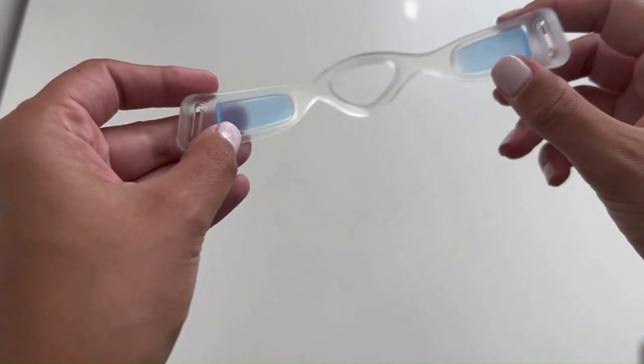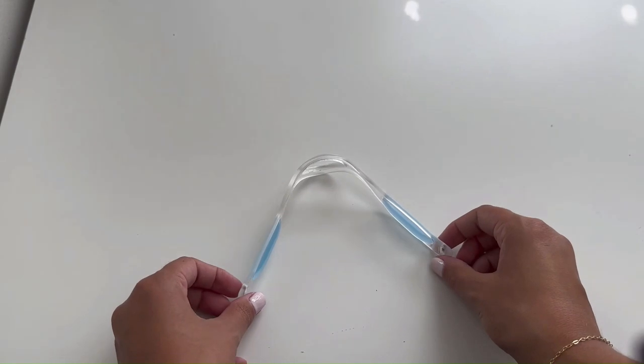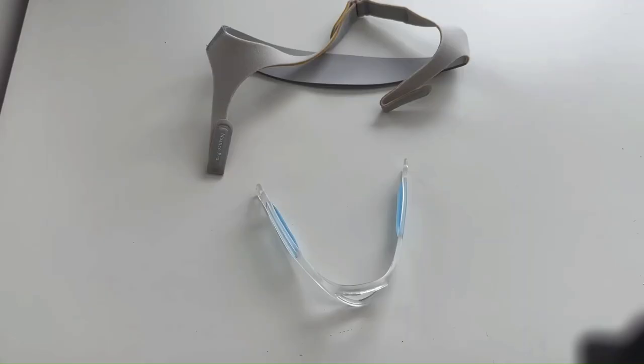The Pro Gel Frame has blue gel pads on each side of it to provide maximum comfort during CPAP therapy.